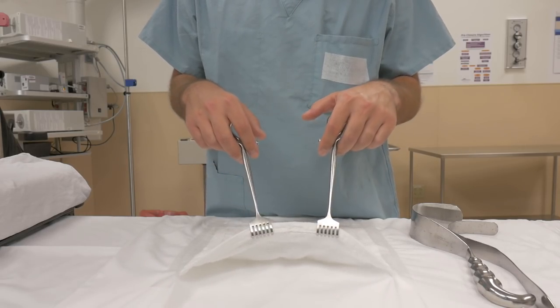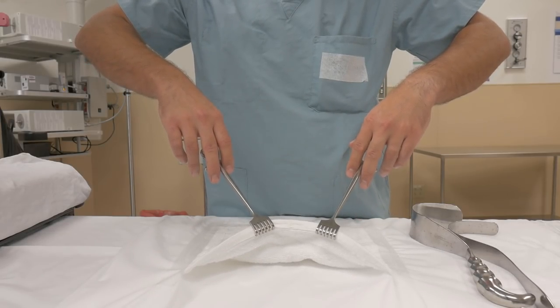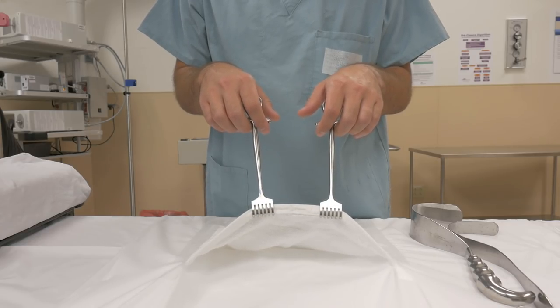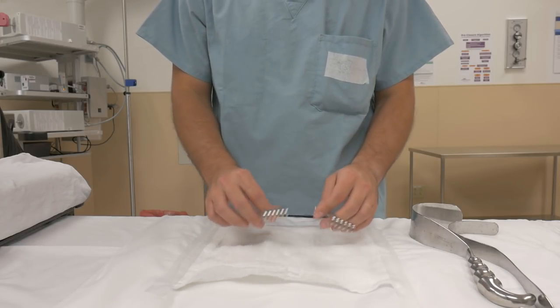You will add minutes onto your arm's life when holding an instrument or retractor. Also a good thing to note with fatigue is how you're holding the retractor in relation to your arms. If you are spreading your arms out and holding a retractor with your elbows pointing out, you're going to kill your arms and shoulders — you're not going to last as long. Keep those elbows in close to your body and you will be able to last so much longer holding that type of retractor, especially those rake retractors.